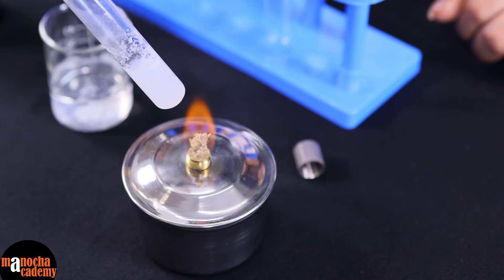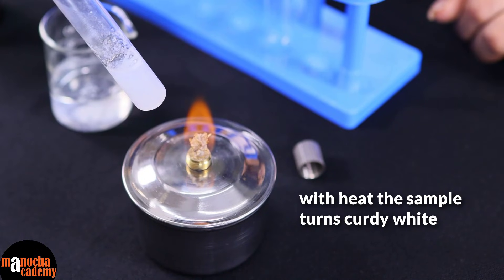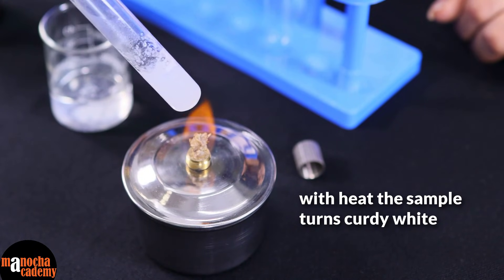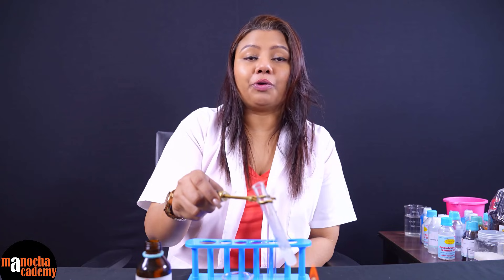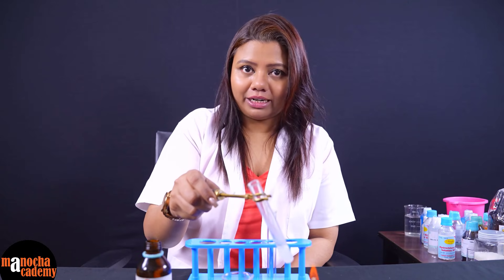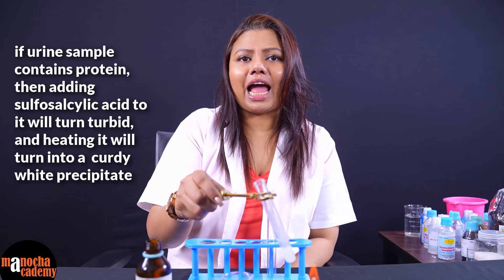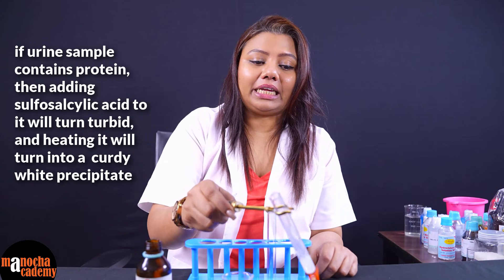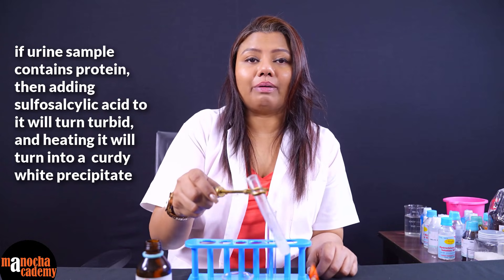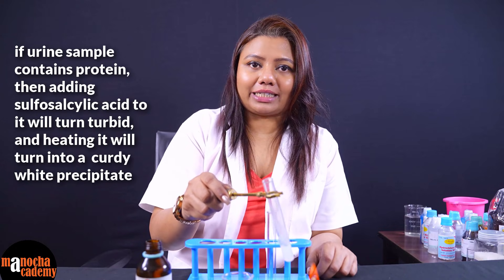As you can see now, a curdy white precipitate is forming and this confirms the presence of protein. To summarize: we take about 2 ml of urine sample; if it contains protein, adding a bit of sulfosalicylic acid makes it turn turbid, and when we heat it, it turns into a curdy white precipitate. This is a confirmatory test for protein.